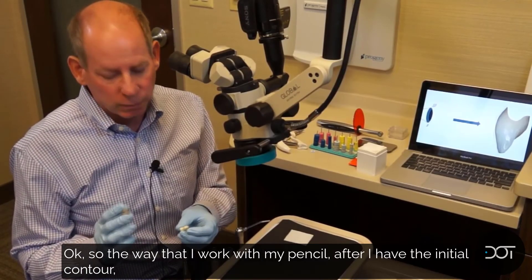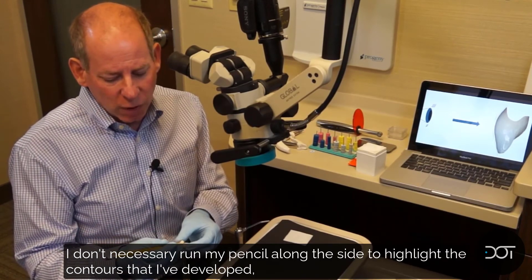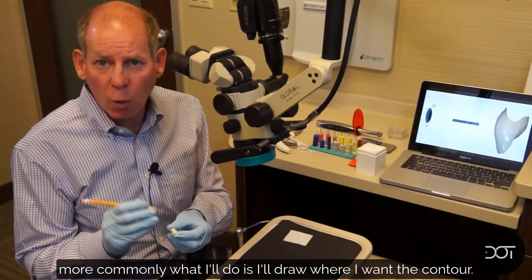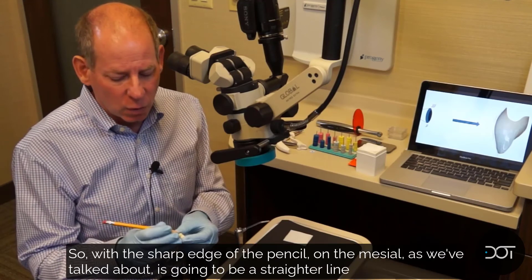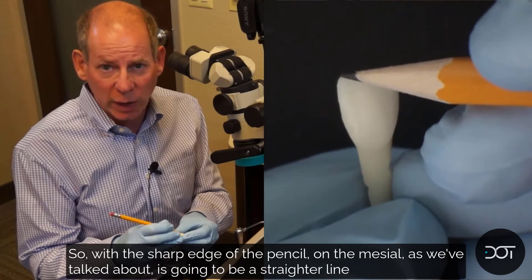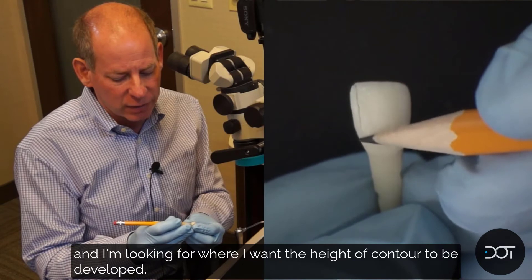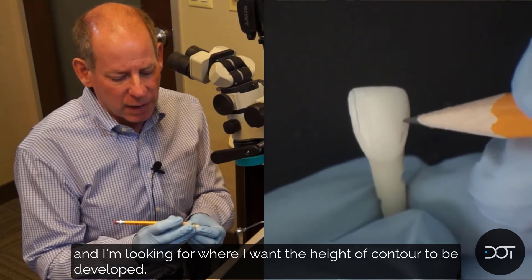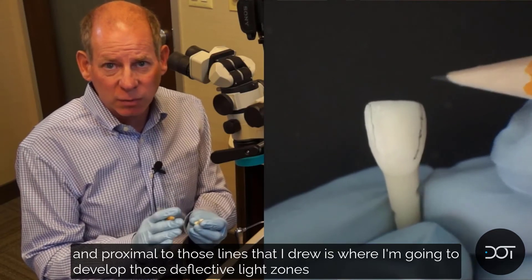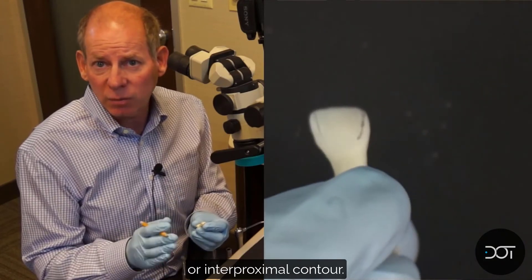So the way that I work with my pencil — after I have the initial contour — I don't necessarily run my pencil along the side to highlight the contours I've developed. More commonly, I'll draw where I want the contour. With the sharp edge of the pencil, on the mesial it's going to be a straighter line, but on the distal it's going to be more of a contour, and I'm looking for where I want the height of contour to be developed. Within those lines is going to be the facial anatomy, and proximal to those lines is where I'm going to develop the deflective light zones and interproximal contour.